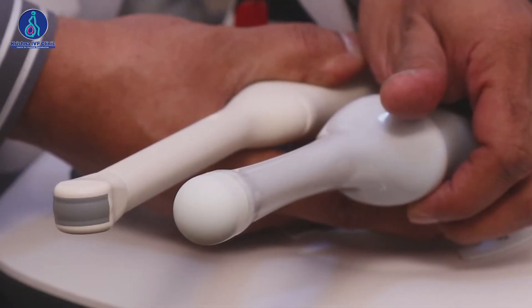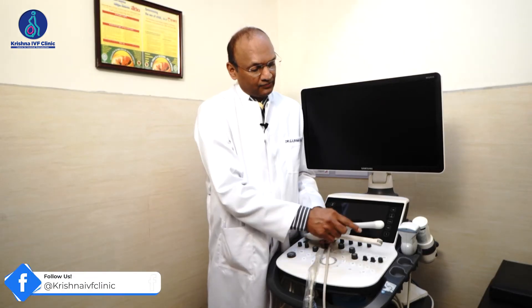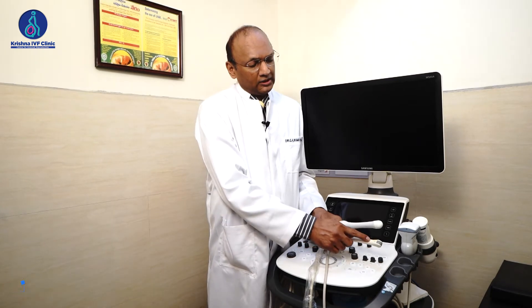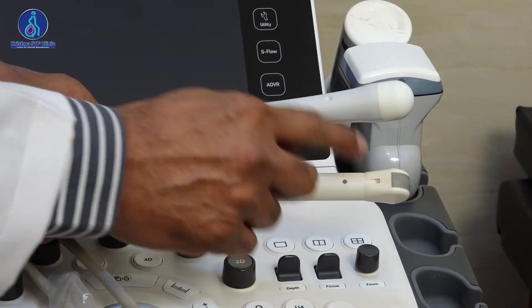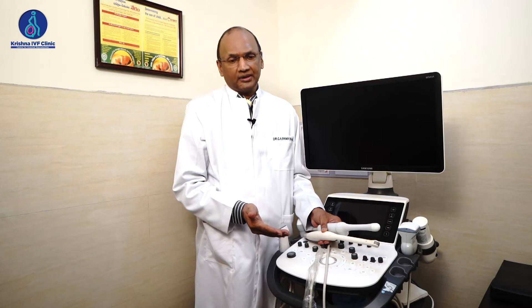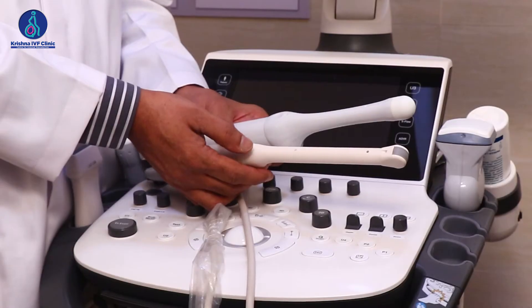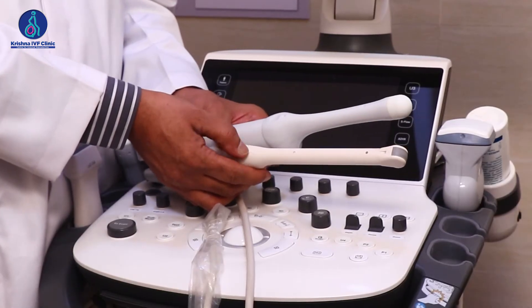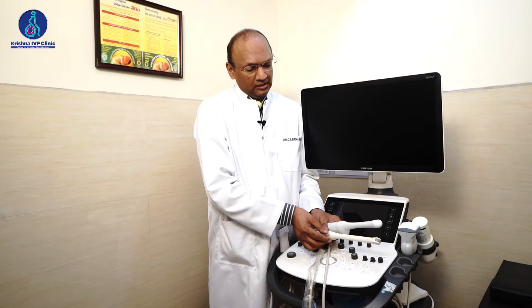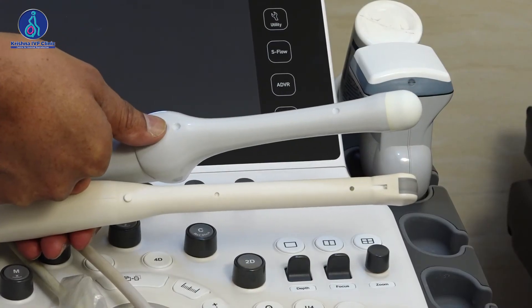This also has an adapter to hold the needle adapter. Here you have a knob to indicate the direction, and here you have a depression to indicate the direction.